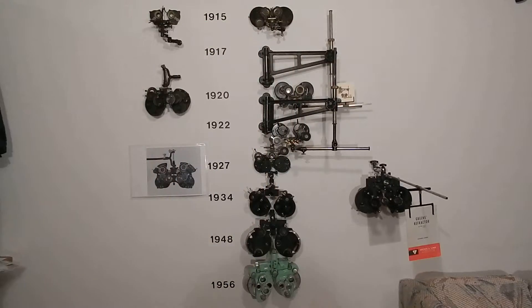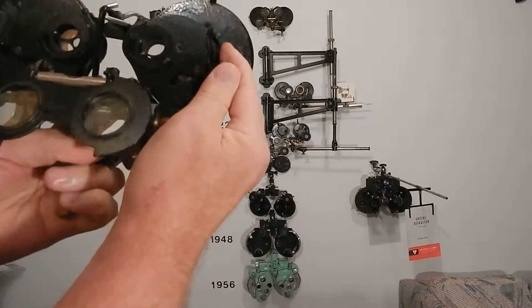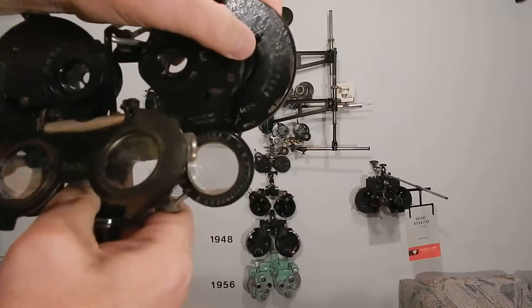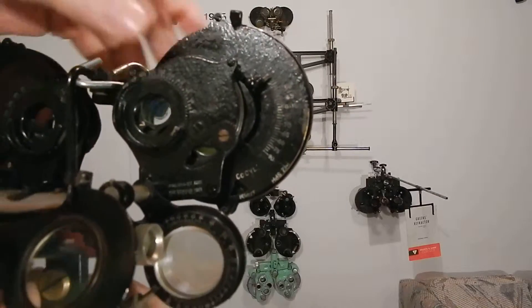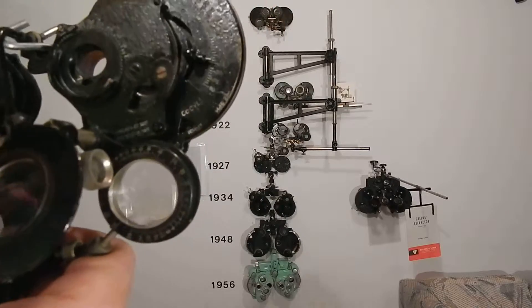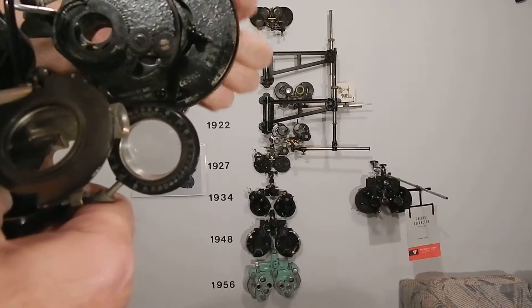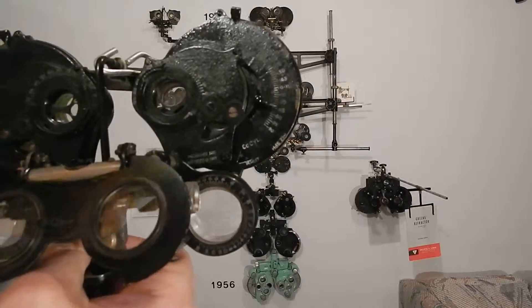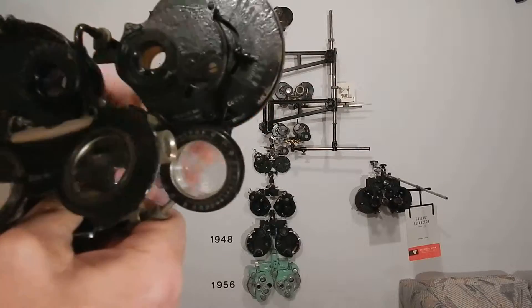There's just one disc of cylinders. It goes up to minus 2. Here's how you do the axis: there's a needle, and you can see it's marked 'axis of the cylinder.' You press the needle up and adjust the axis of the cylinder, which adjusts the axis of all the lenses inside that battery. There's a battery of cylinder lenses here, and that gear adjusts the axis of all of them at the same time — so when you click one, it's automatically in the right axis.